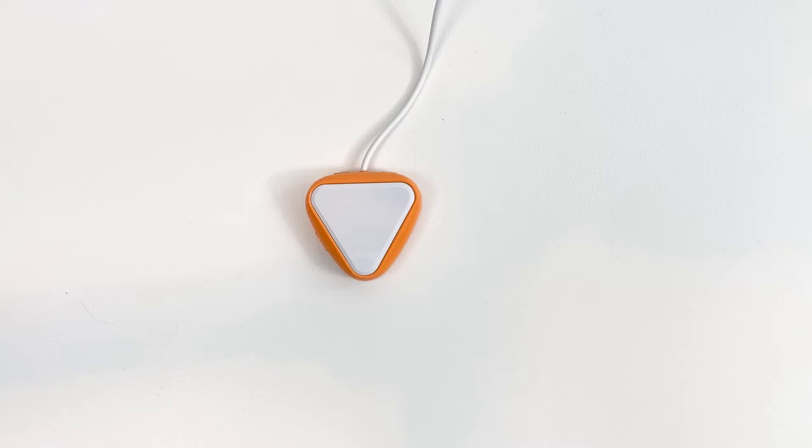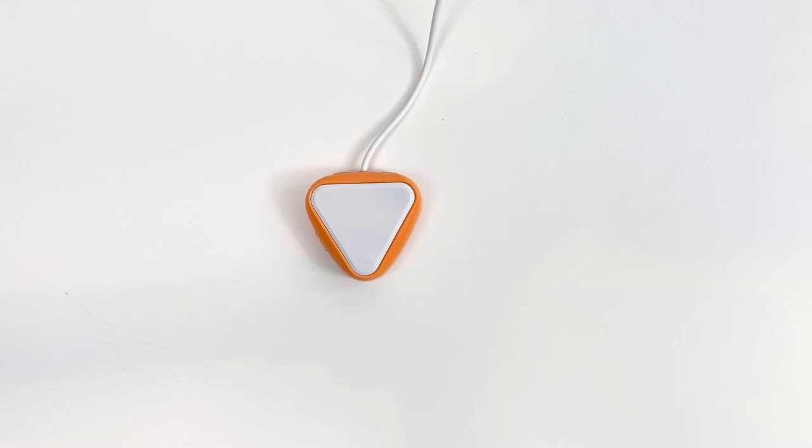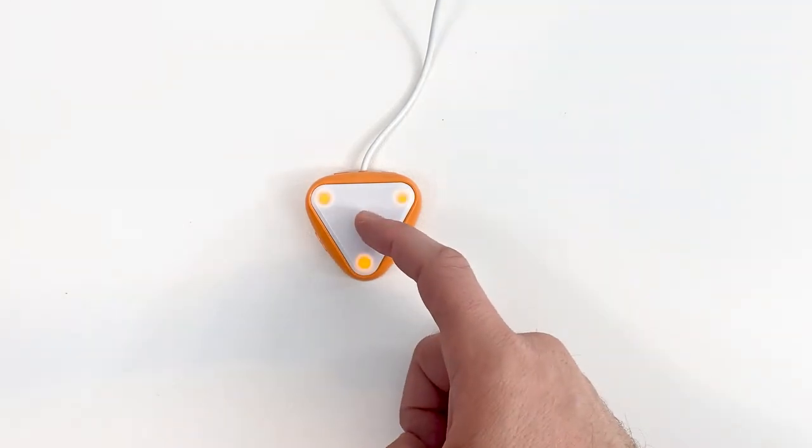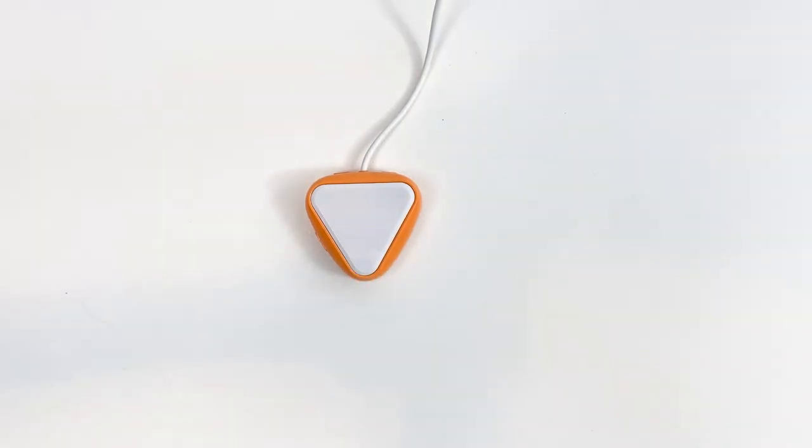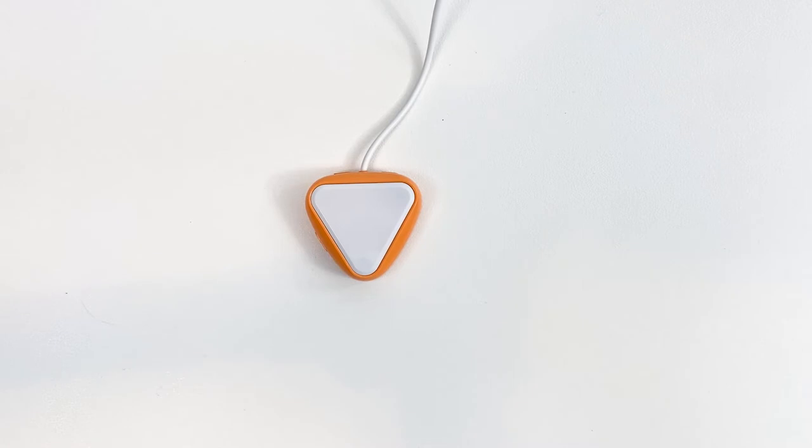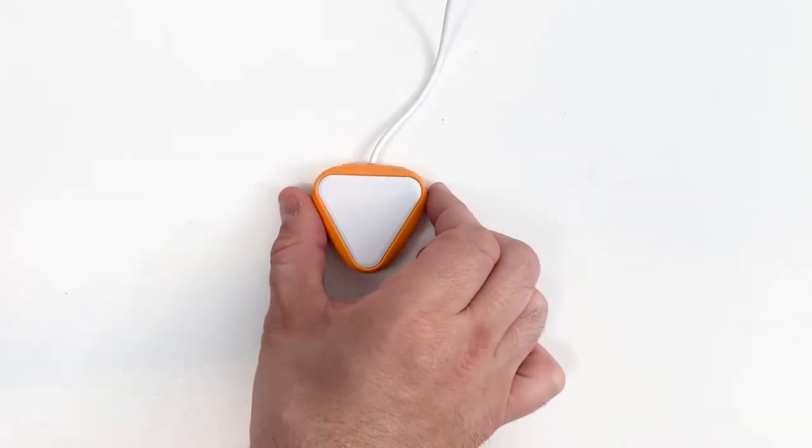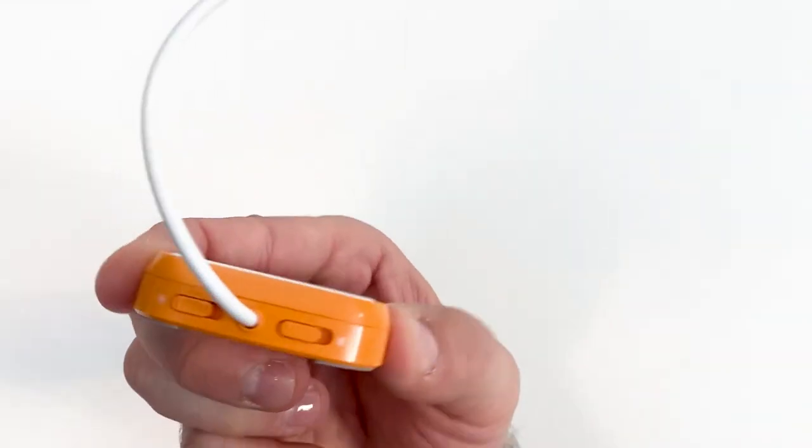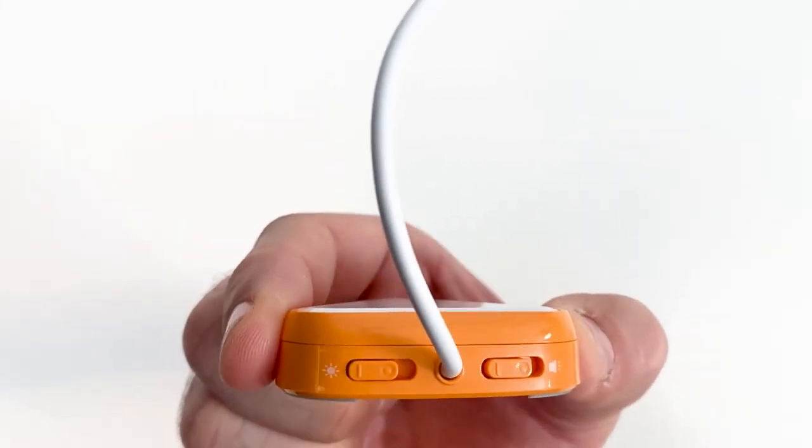Little Candy Corn 2 offers user visual feedback with LED lights and auditory feedback with a beep when the switch is activated. Both of these features can be turned on and off using the toggle switches located on the side of Little Candy Corn 2.